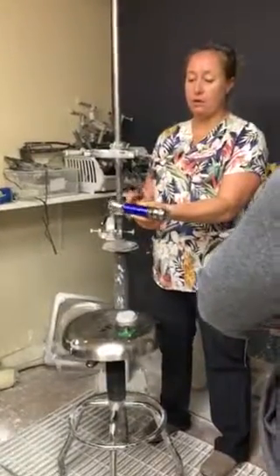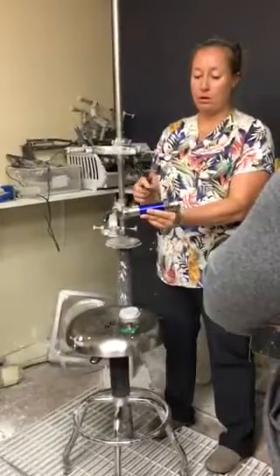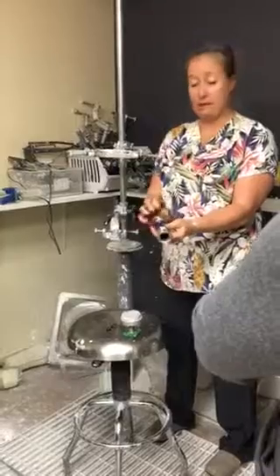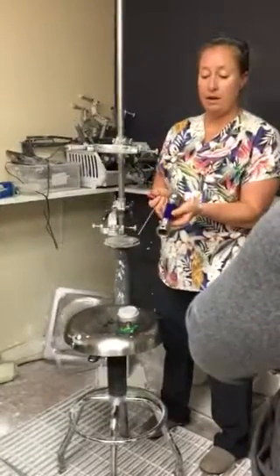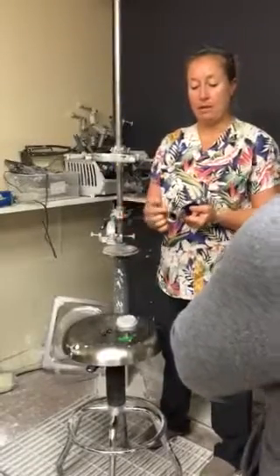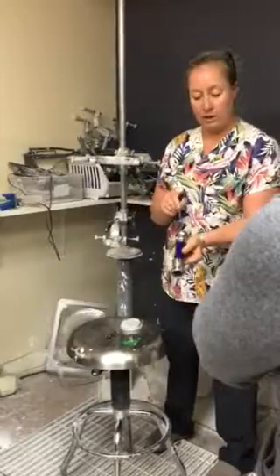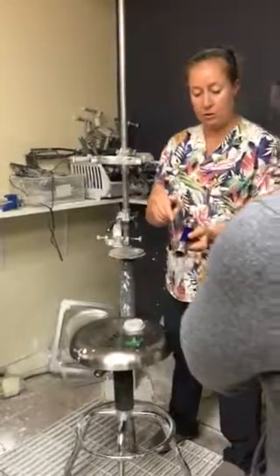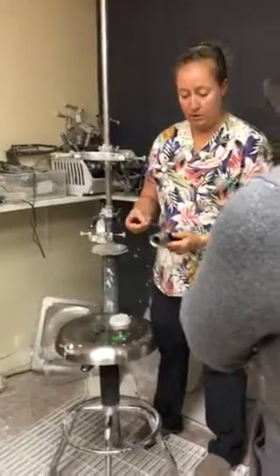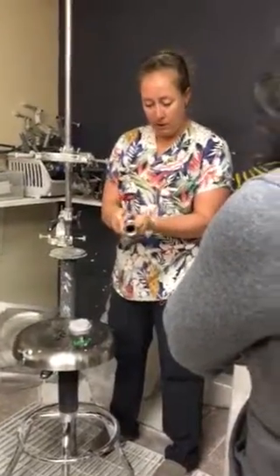To begin, take a look at your pylon and make sure that your two clamps are lined up so that one is not slightly rotated in relation to the other. If you have one of the pylons that has the female adapter integrated into it without the set screw, that's fine — just line up the center of one screw with the center of the other. Mine is rotated a little bit, so I'm going to fix that.